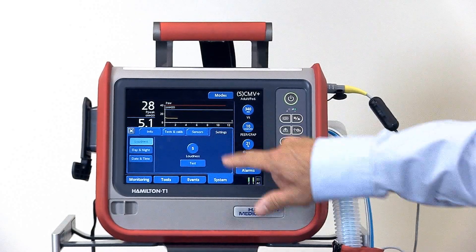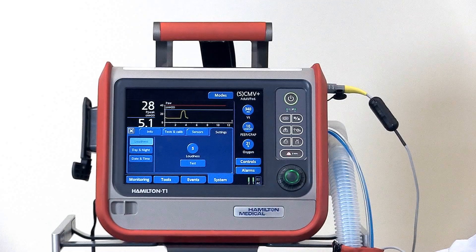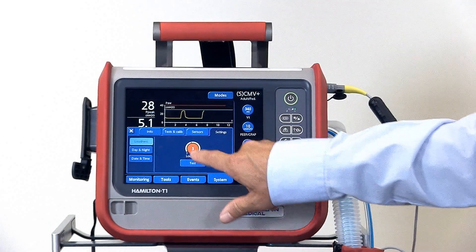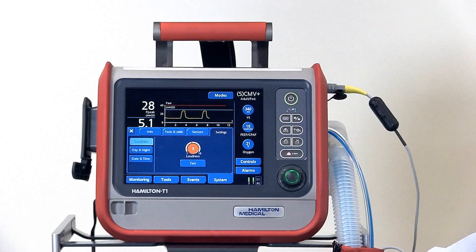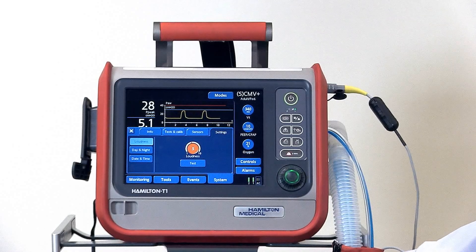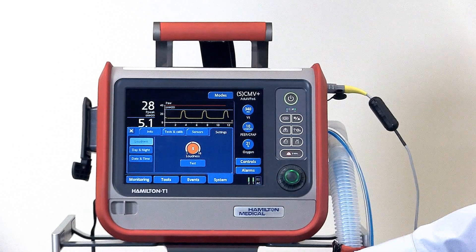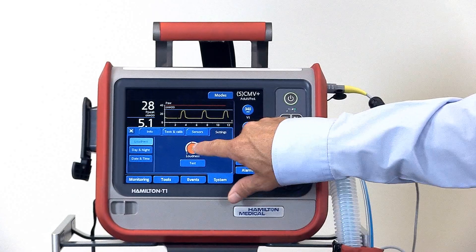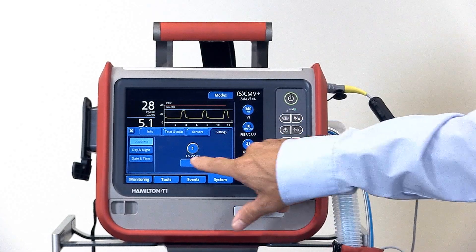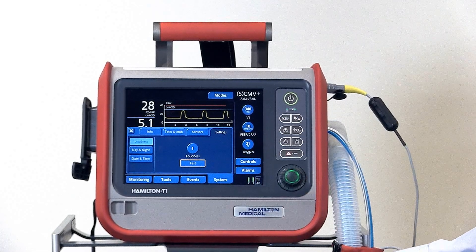Next you'll find the settings tab where you'll find the loudness adjustment. The loudness adjusts from 1 to 10, with 10 being the loudest and 1 being the most quiet. Wherever you decide to set it, you can test the loudness by pressing Test.